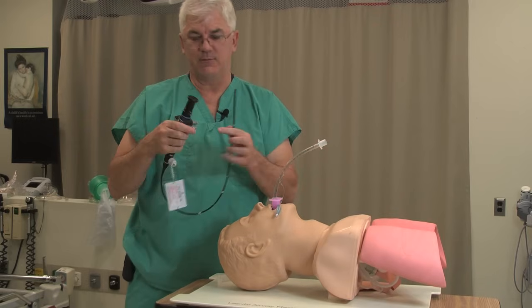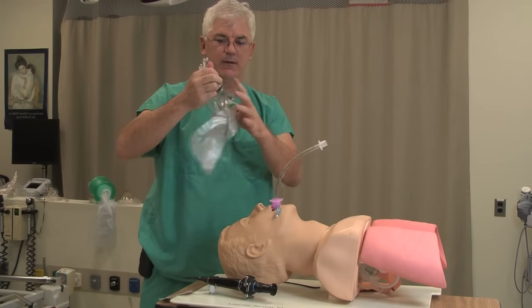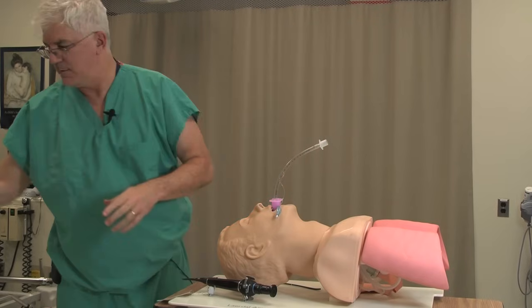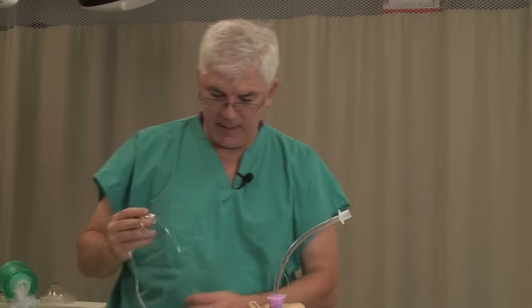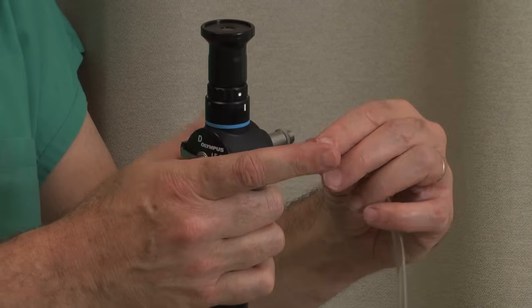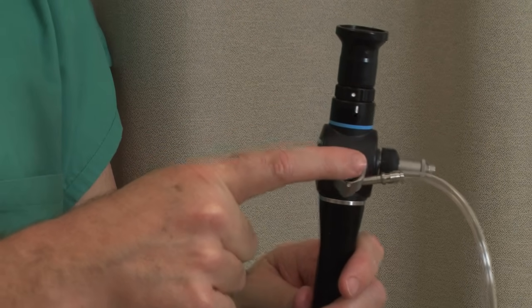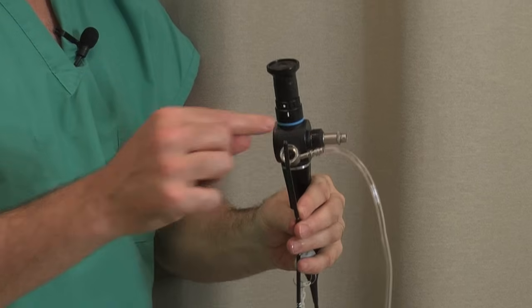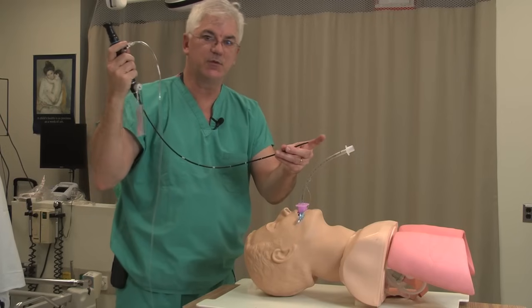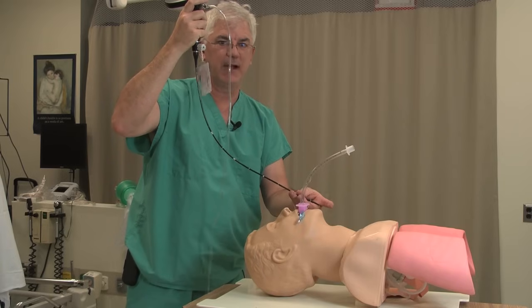What's an easy way to get the appropriate oxygen? Just get a non-rebreather — they're everywhere. Snap it off, hook this end up to oxygen on the wall, and hook it right at the suction port. That way, if I cover this with my finger, it's going to blow oxygen through and blow stuff out of the way. Another thing that oxygen will do is help with apneic oxygenation. I'm going to be down in the posterior pharynx — if I can puff in a little oxygen, that'll help me out.